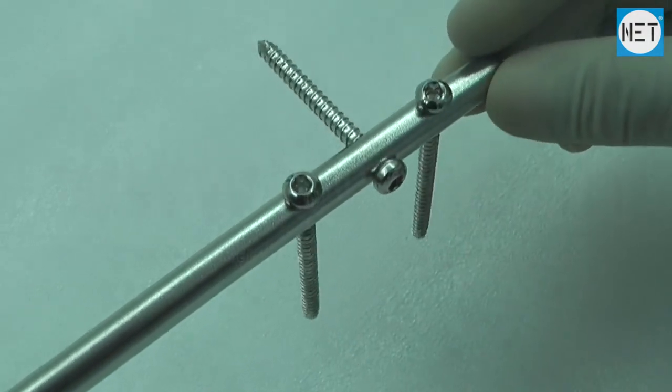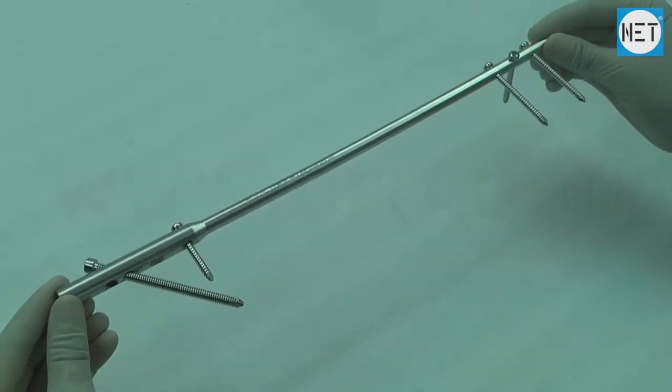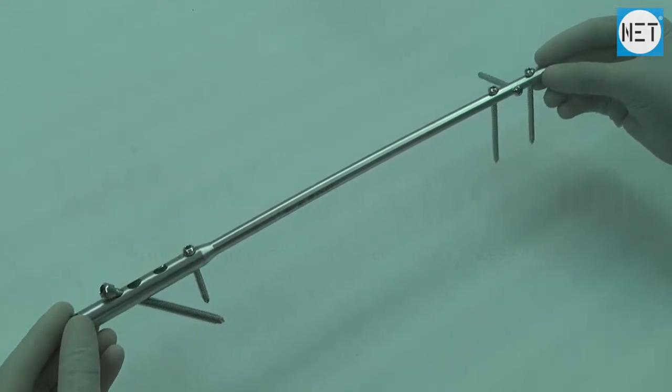These nails are used with instrument sets AS071 and AS071 DJ.